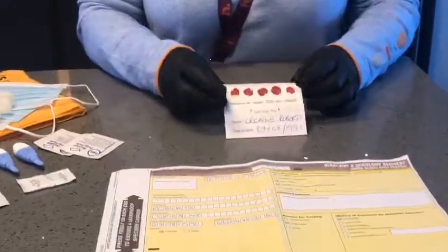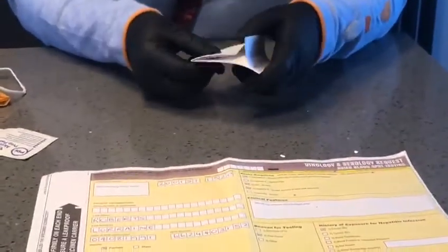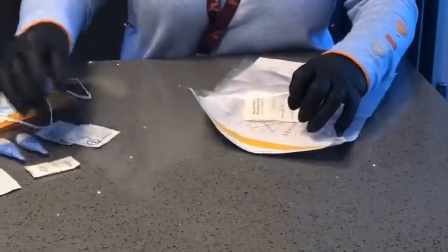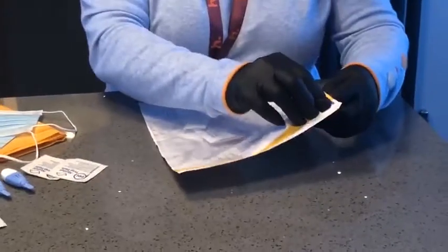You need to let this card dry for 30 minutes. And when it is dry, you'll fold the cover inside. You'll turn over your request form and slip it into the polythene pocket at the back with the silica gel sachet, because without that the sample may fail.